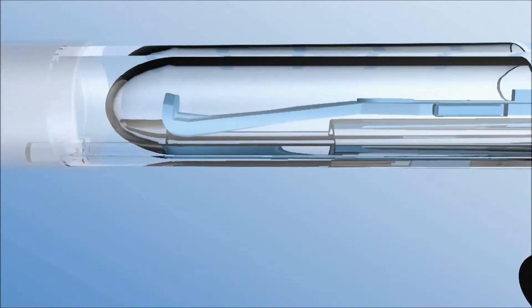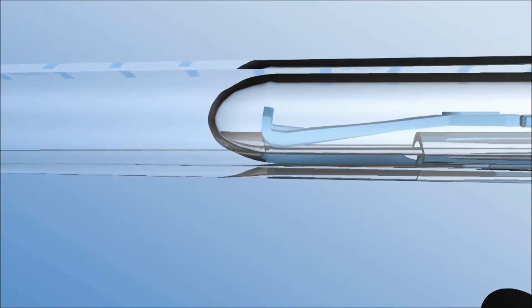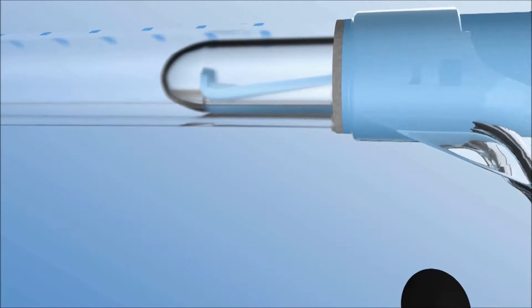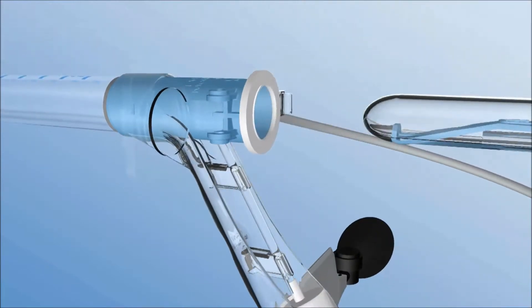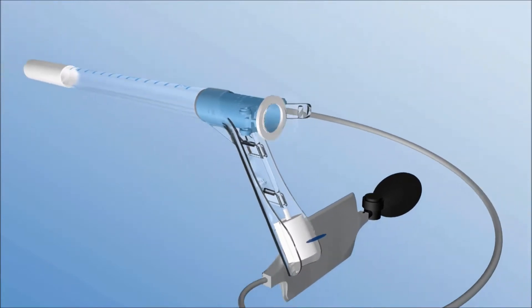The innovative ClearView system, situated within the obturator, shines light directly onto the area being examined or treated, using the revolutionary Lux system, exclusive to EVEXA.